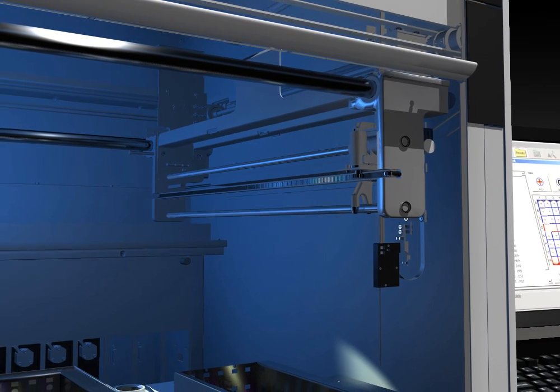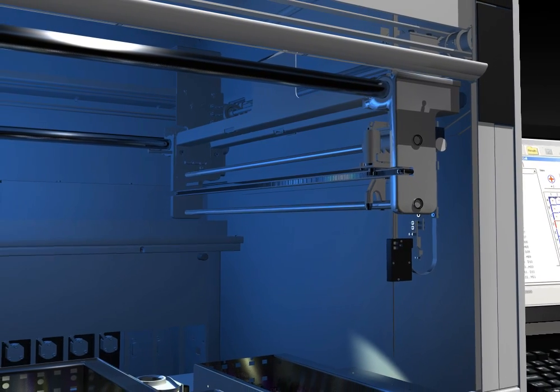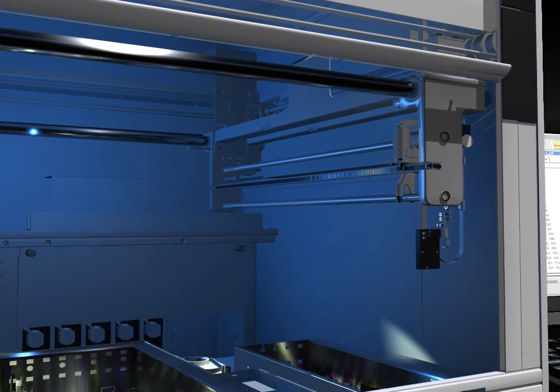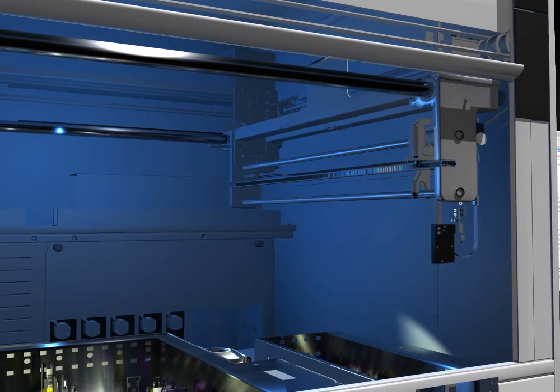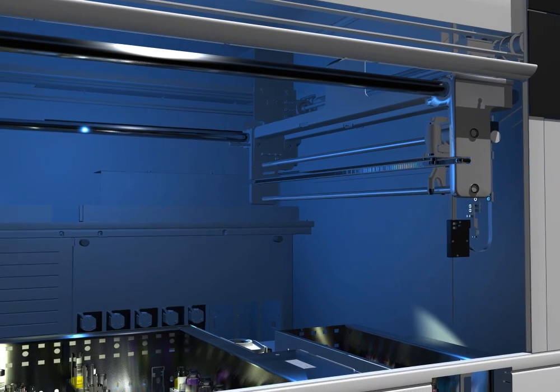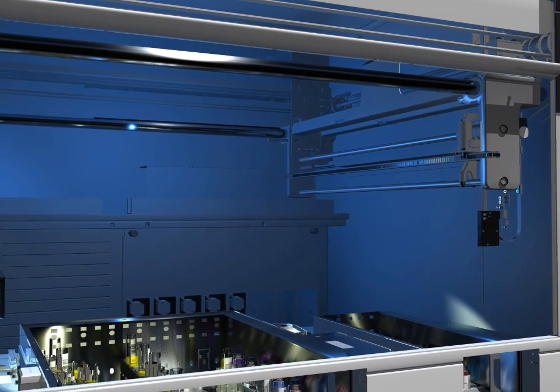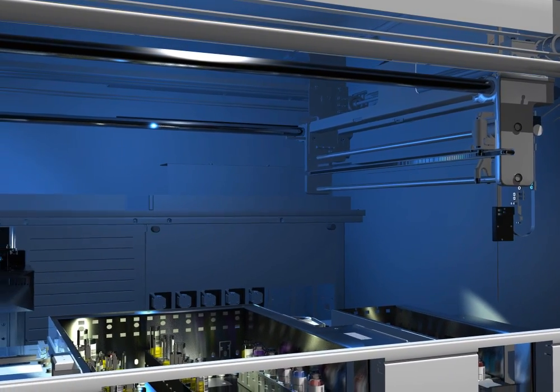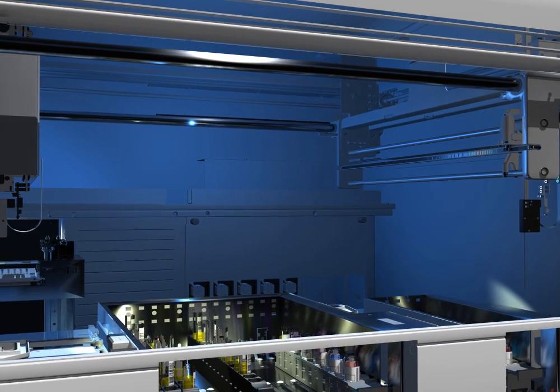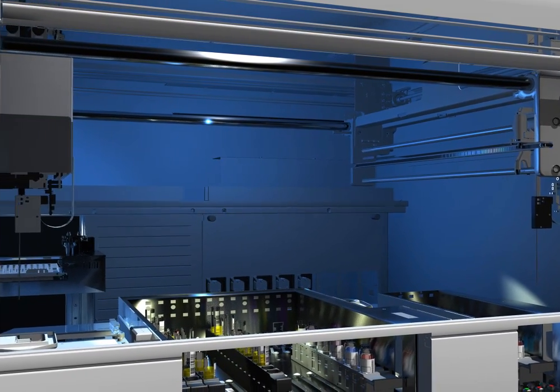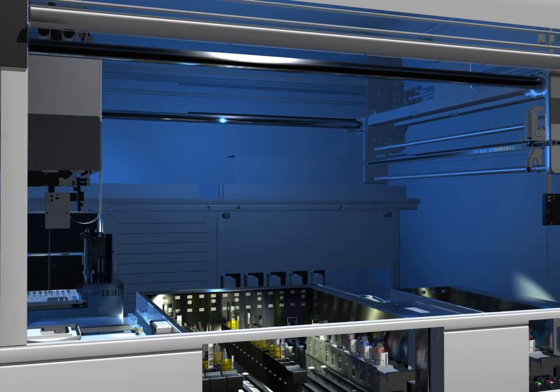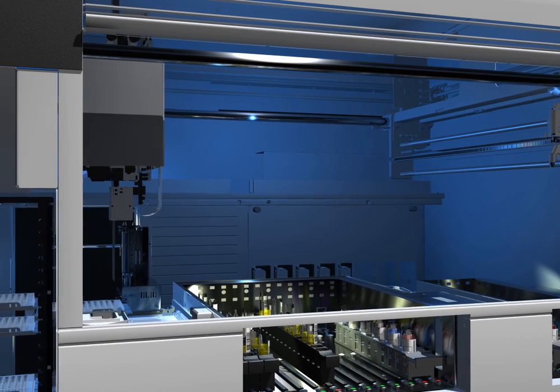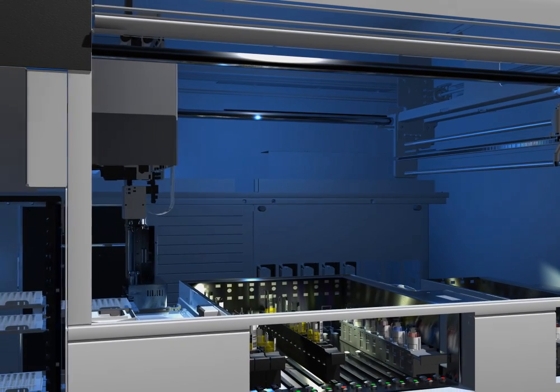This greatly enhances the productivity and turnaround time for every test run. NEO's probes feature liquid level and clot detection. The pipetter module also features an automated pipetter self-check test, which automatically qualifies the performance of the pipetter as part of daily maintenance.